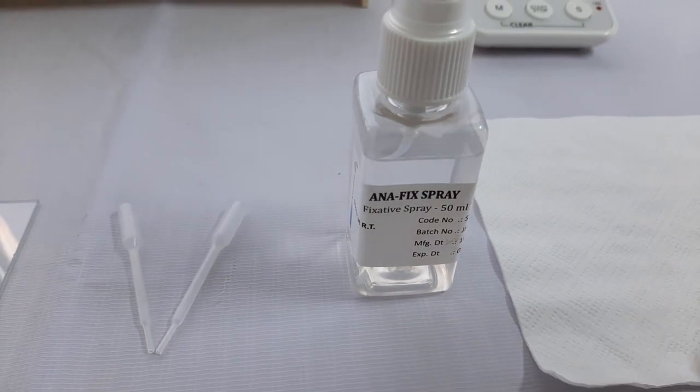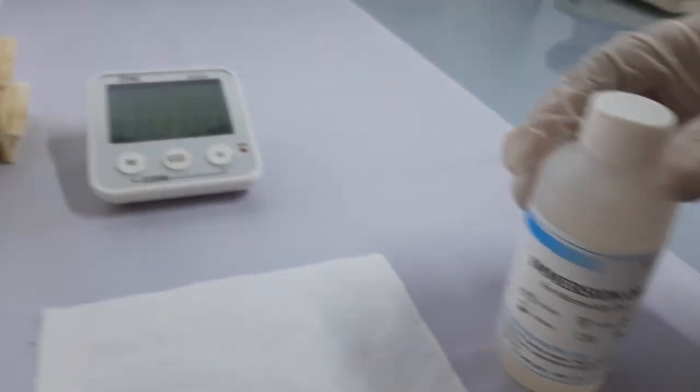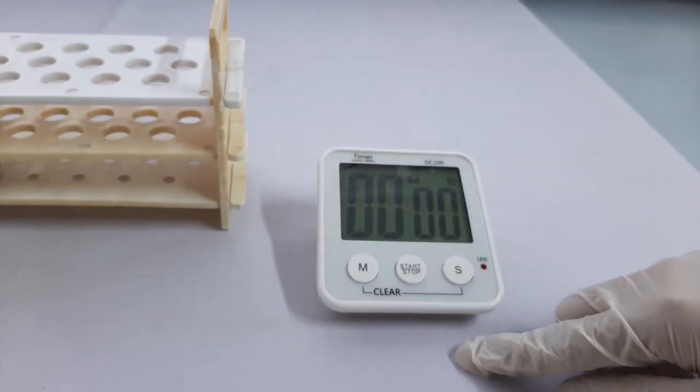Sample dropper, fixative spray, tissue paper, immersion oil, and timer or stopwatch.